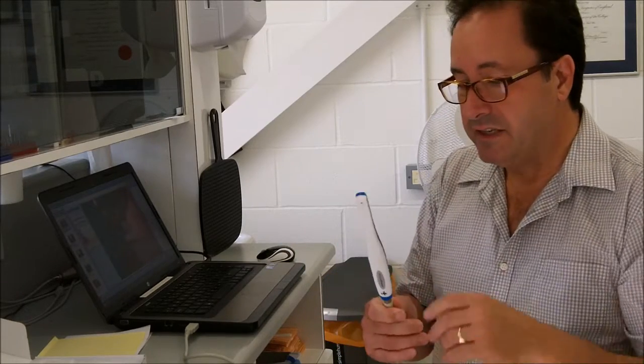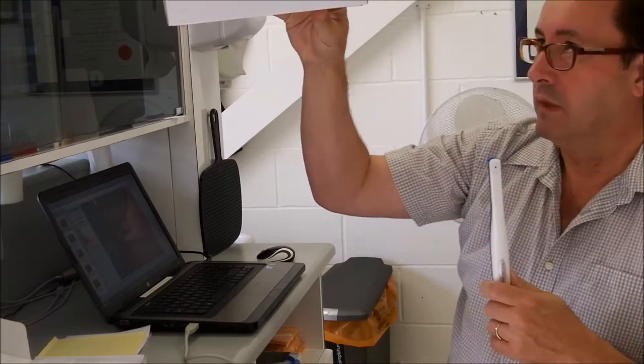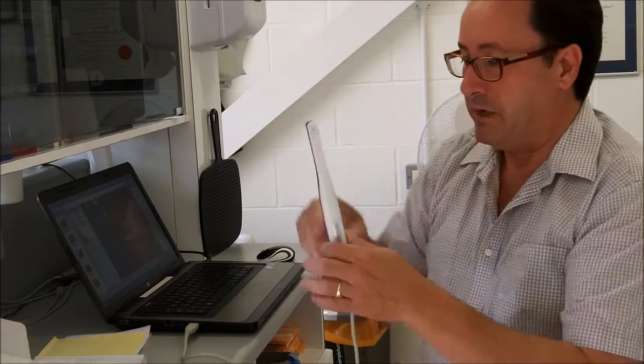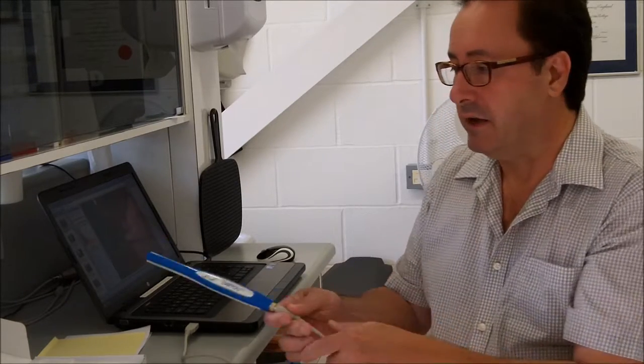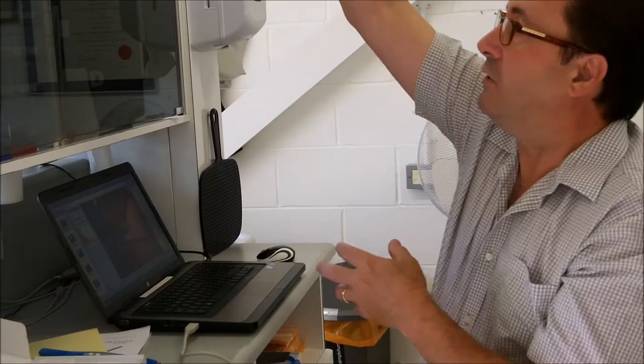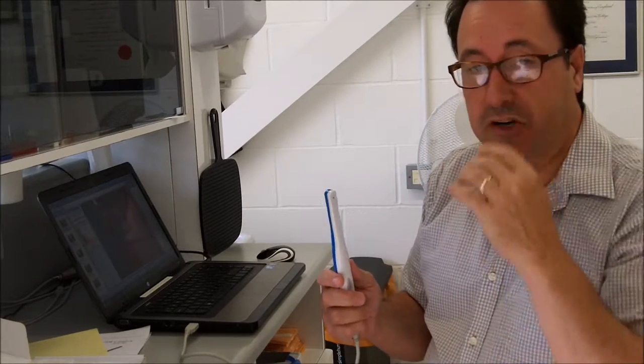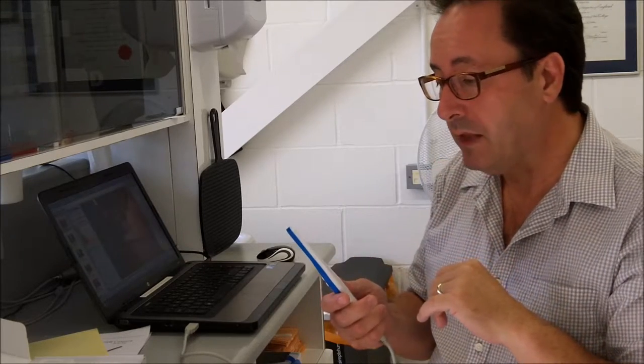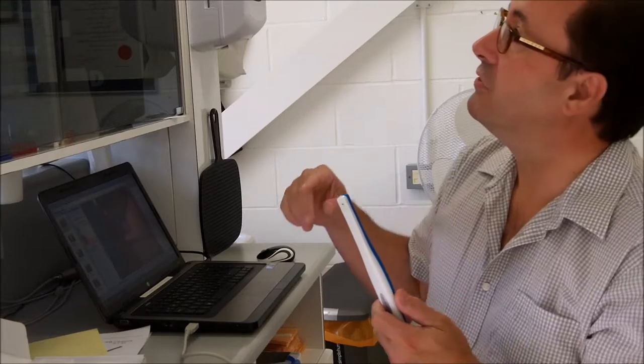I mean, I think a lot's claimed for these. This is the Dario is about £110, I think, something like that. The other one, the MD740, is about £10 more. So what's the essential difference between these? The Dario, I think, is the slightly cheaper one. I think it's about £110, and the MD740 is about £120. I don't think they've, I mean, as I say, internally I think they're the same. They call themselves autofocus. I'm not even at all sure they've got a lens in here. I think they may have a lens in here, some sort of tiny lens, or it may be just a pinhole camera. Because there's very little depth of focus. It seems to me from just comparing the two, there's less depth of focus on the Dario than there is on the MD740.